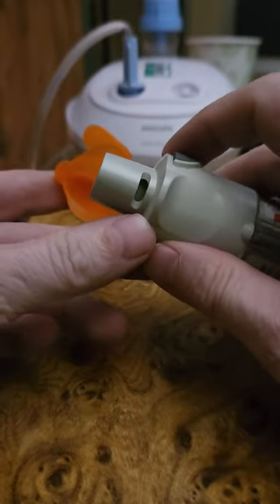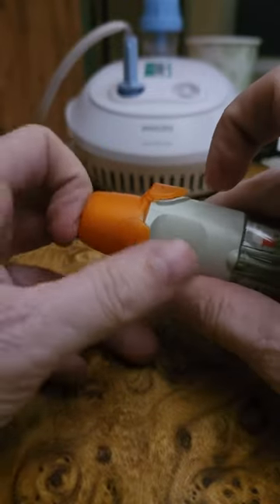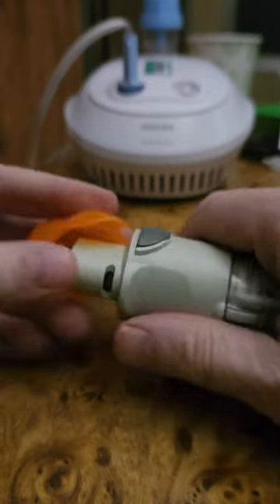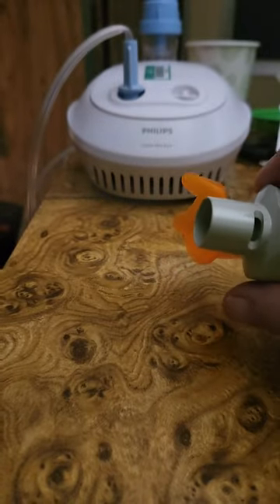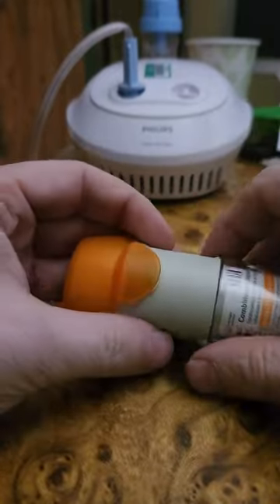This is your trigger. I don't recommend arming the device with the cap off — I did that and it's easy to accidentally set this thing off. I'll show you how — it takes no pressure at all. Again, you just twist it and then you can see there — hope that helps.